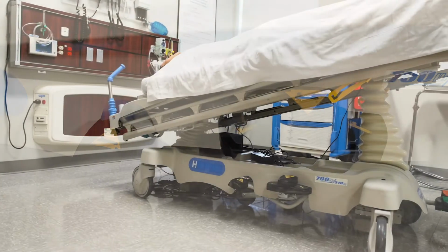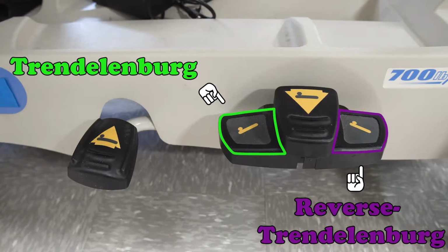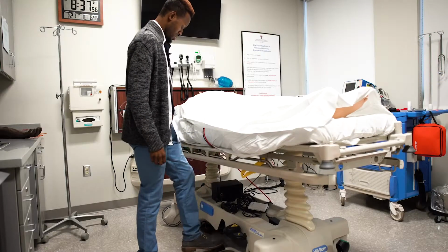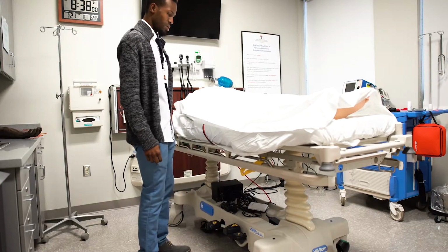If your scenario requires a bit more angle, then you would use the Trendelenburg or the reverse Trendelenburg pedal. You do this by pressing and holding either pedal until the stretcher reaches the desired position. But before using either of these pedals, make sure the stretcher is in its highest position.